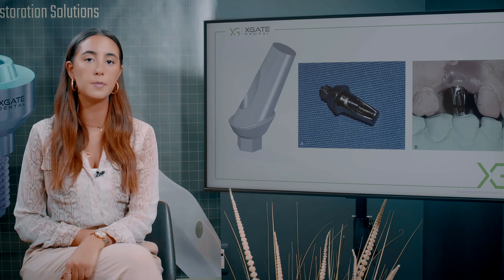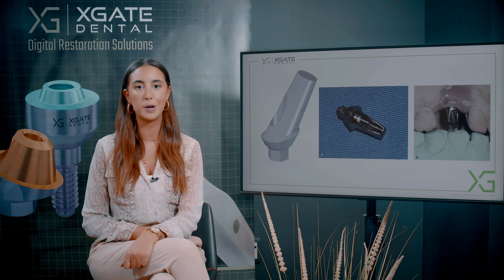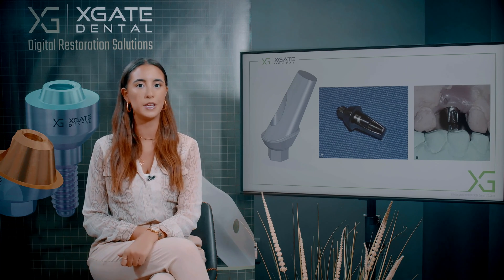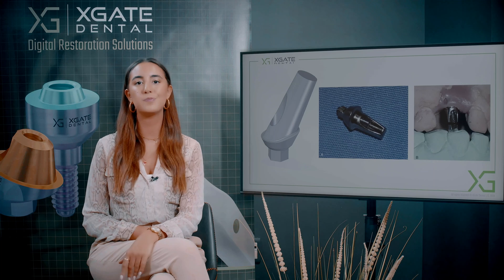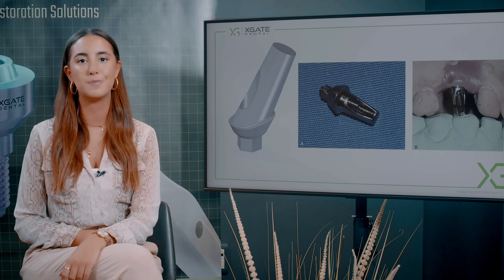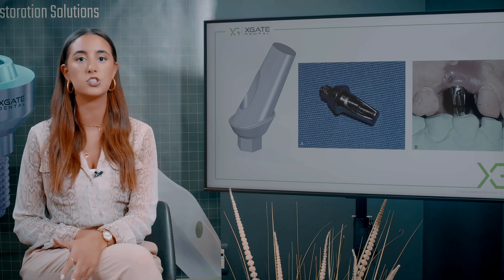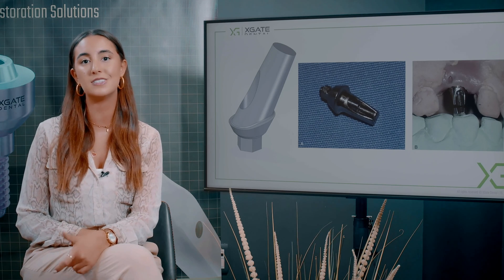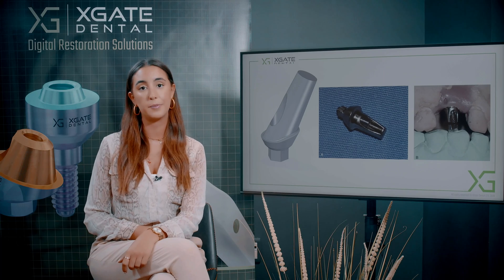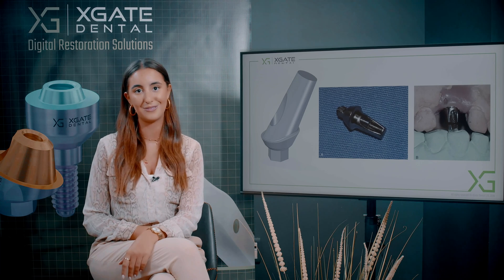We take a prefabricated abutment that fits the implant, and by the design of the abutment you can make the crown itself. You cut the abutment, measure its height, process it slightly, and then make the crown. This crown will go into the patient's mouth. The technician sends the crown with the abutment to the doctor, who assembles the abutment onto the implant and cements the crown.